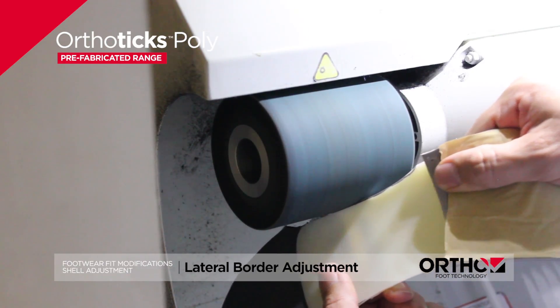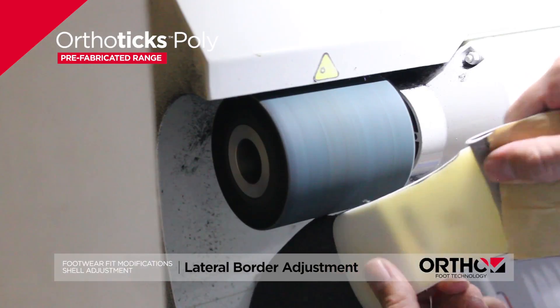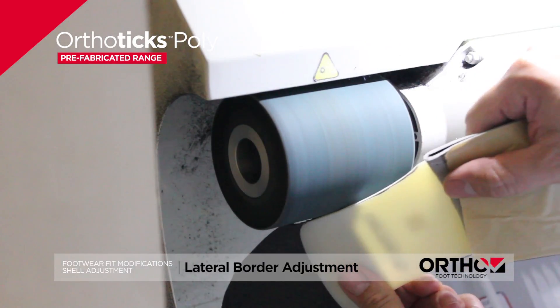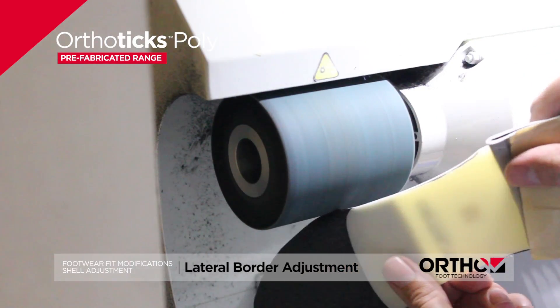Instructions: with a grinder, reduce the width of the lateral border to template or as marked.